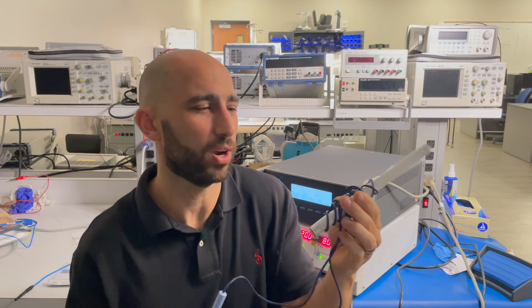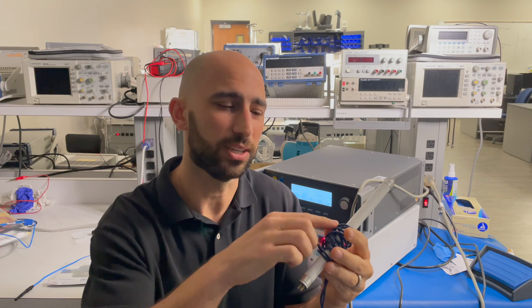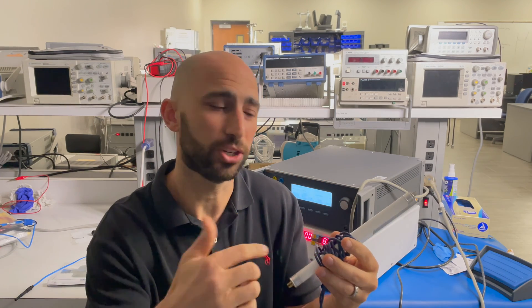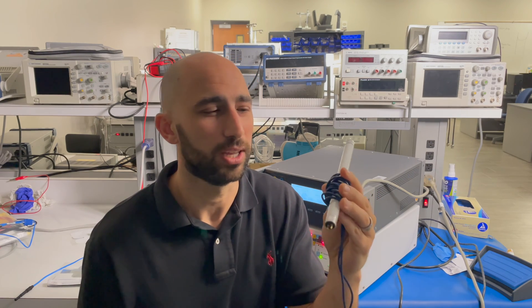So what's going on there? Just by wrapping this cable up, the insulation here is getting penetrated by that high frequency signal, and it's causing current to flow in this gas tube, allowing the gas in there to get excited and to light up. I don't have anything connected here or there, but I'm still able to get charges to flow in the fluorescent light.